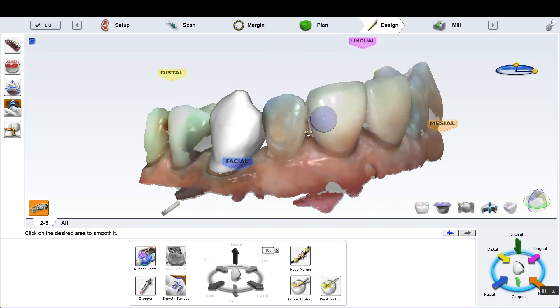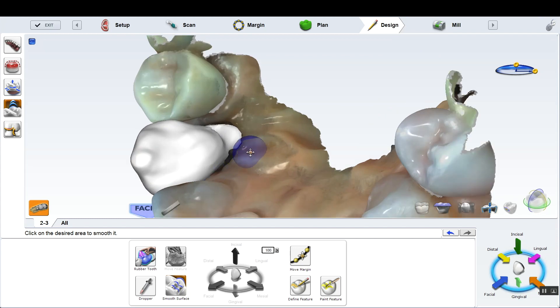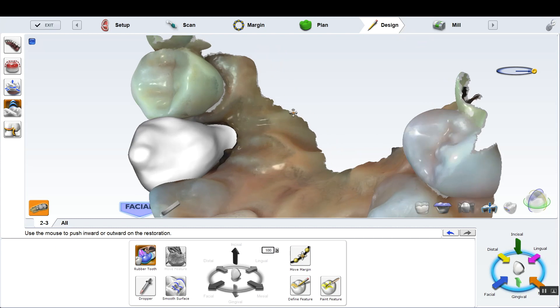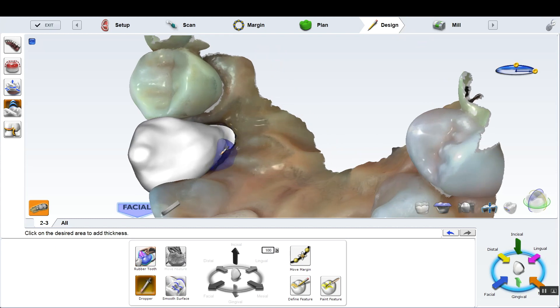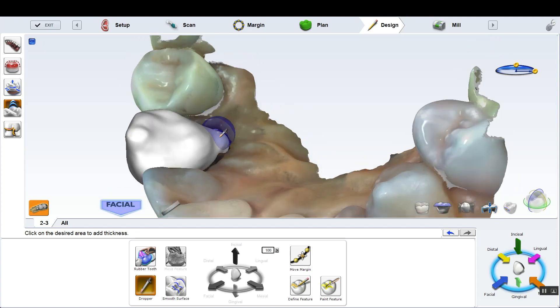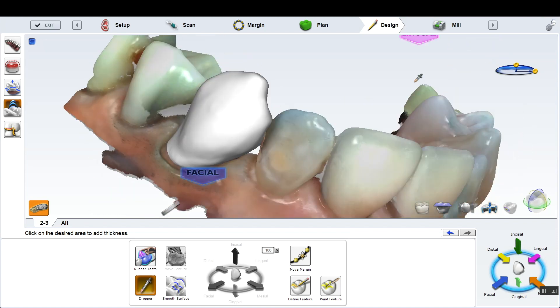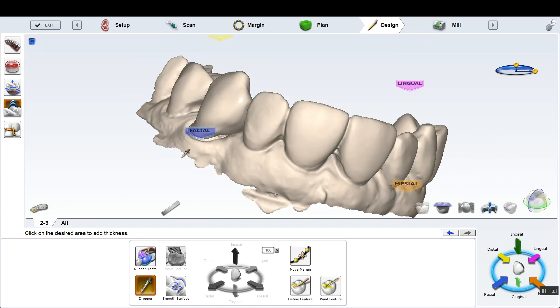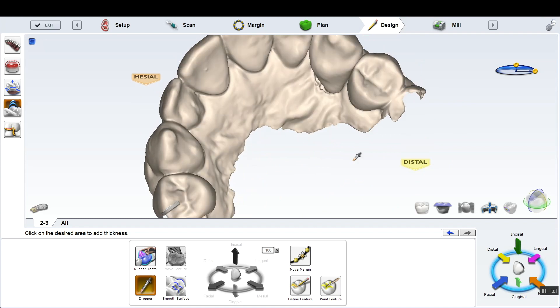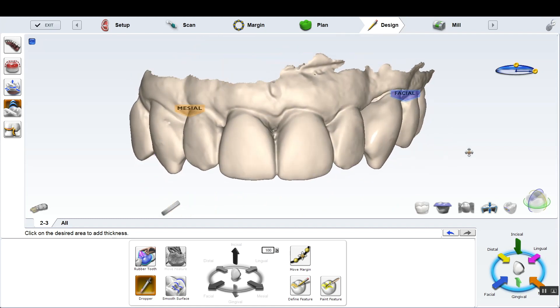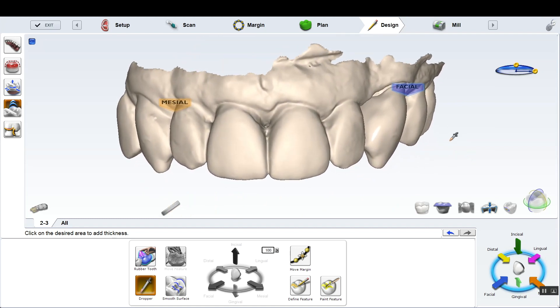A little smooth tool here or there. This is real time, not sped up at all. I'm just kind of going to smooth that out down there. I'm hoping we don't have a biologic width issue there, that we're not encroaching on the bone. It's a little suspect in my mind, so we'll have to see how the patient heals there. They might need a little bit of osseous removal. We'll see. But we're pretty much almost done with the design. Look at that. That was 10 seconds.